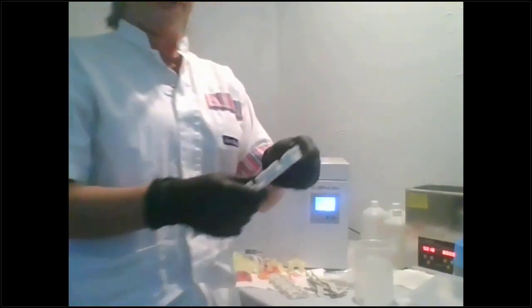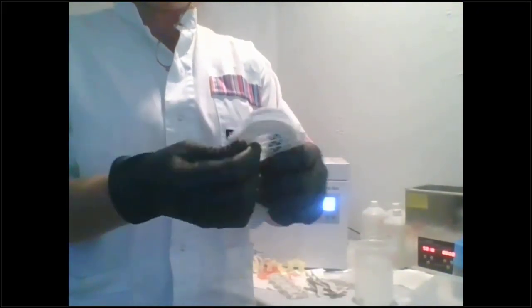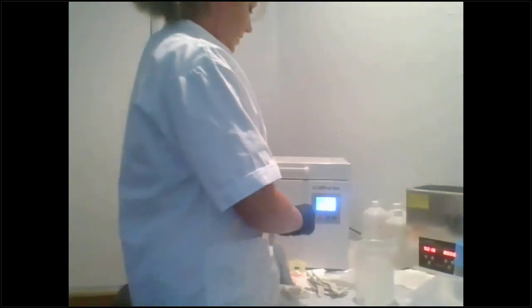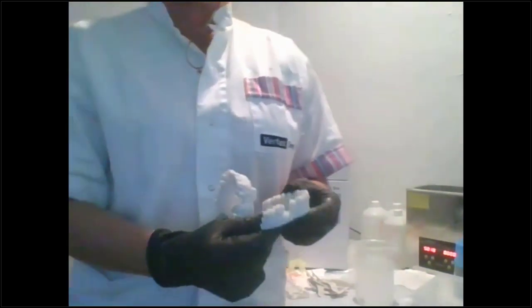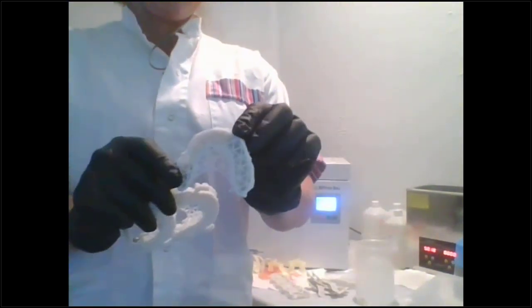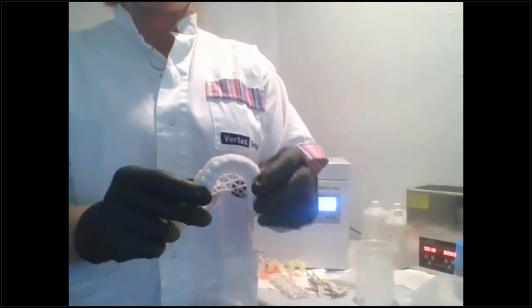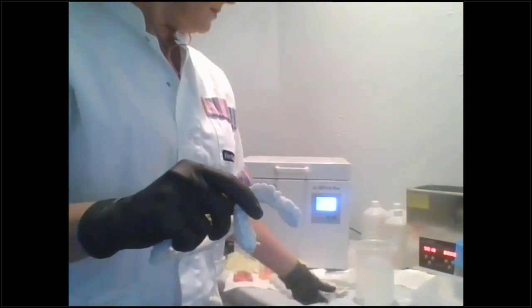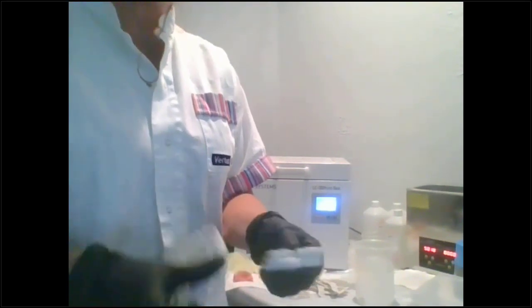And then you can just pop them apart. So you can see they just snap apart, and then you can just pull off that thing. They snap apart real easy. We timed a bunch of them, and it took about 20 seconds to snap everything apart on all of the builds. And you can see the lattice structure. That actually works out okay. Most people just leave that, but if you don't like it, you can just pop that out too. And then you can go to your thermoforming.